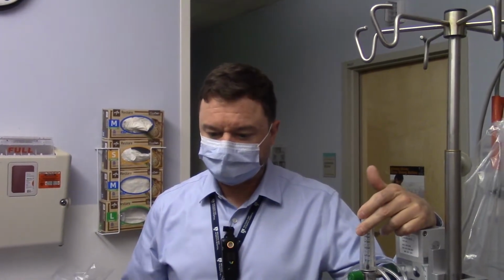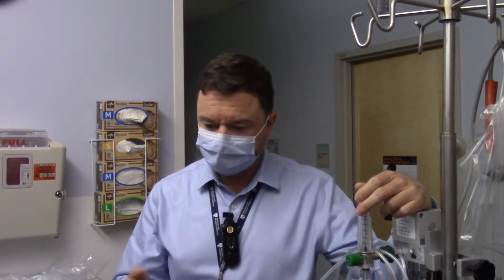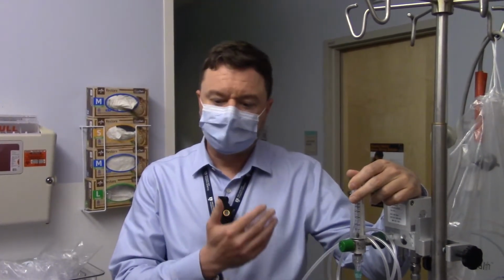So I'm Brian Faix. I'm the manager of respiratory therapy here at ANMC. And like David said, the purpose of today is to go through and highlight bubble CPAP and its usage, the setup, application, interfaces, indications for use, go through some of the settings where we start, managing the bubble CPAP throughout the process, and eventually weaning and coming off.